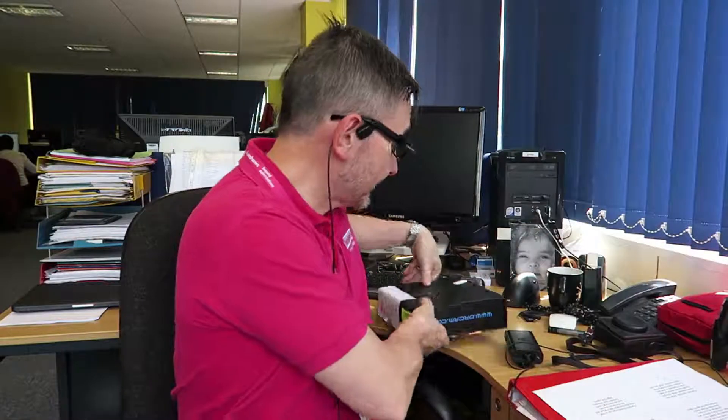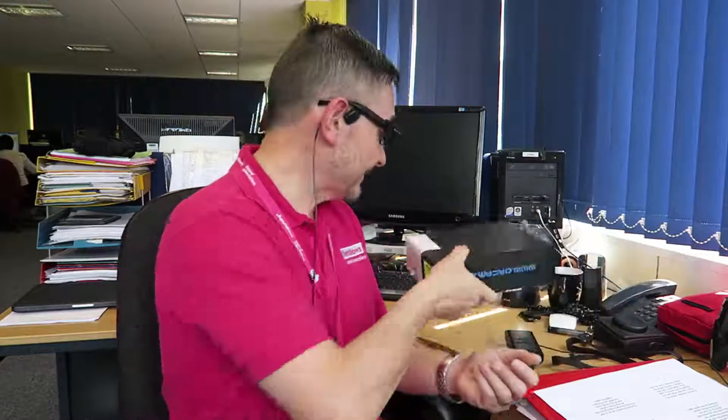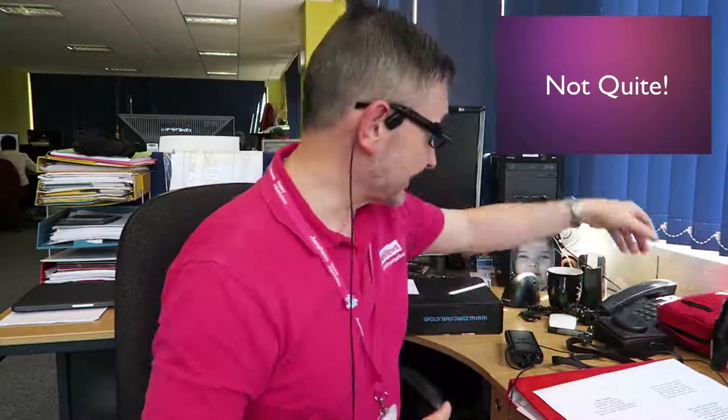Color detection — I'm going to grab some stuff. Remember, this is currently in testing mode. I've got something black here, so I'm going to point to it and it said 'black area.' Now I'm going to point to this very lovely bowl — it said 'blue area.' And this red one here — see what it says — 'red area.'